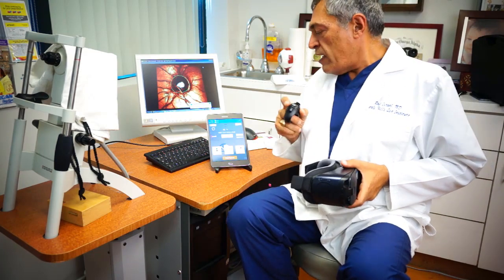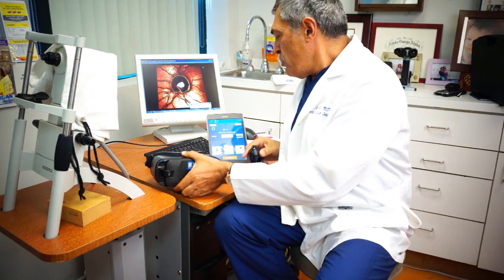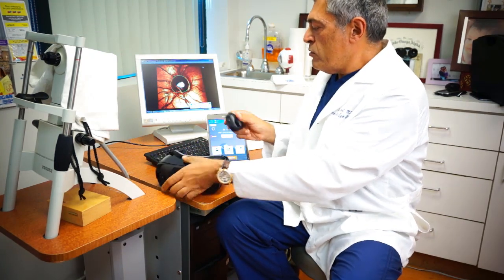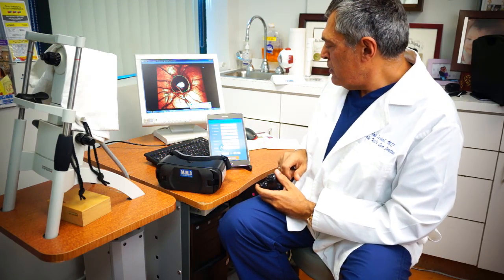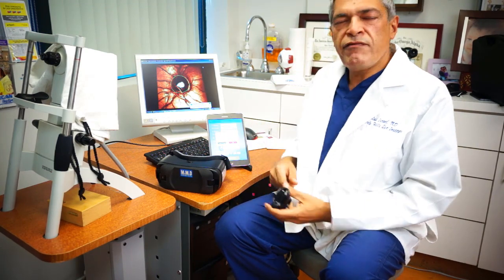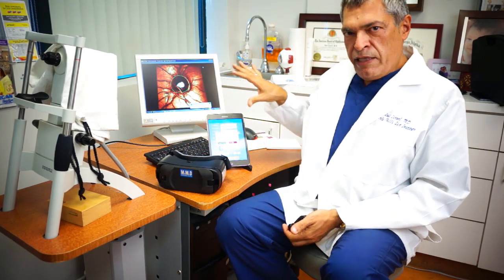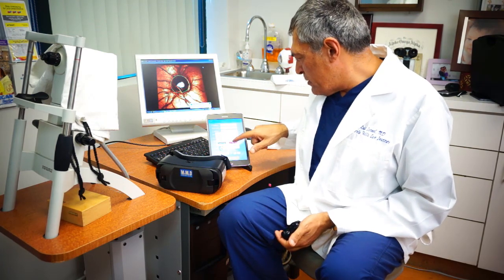I'd like to take a moment to show you how this device works. It's very easy to operate. First you have to add a patient — I will add a test patient. It's going to ask me if I want to add an image. You can add the image of the patient to the database, but right now I'm going to say no.